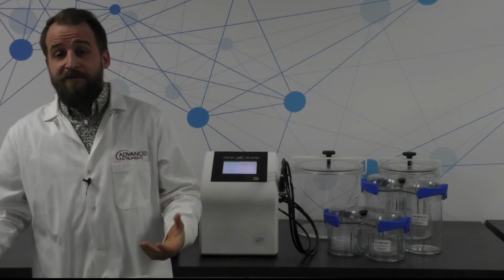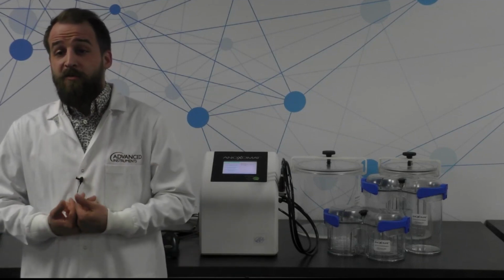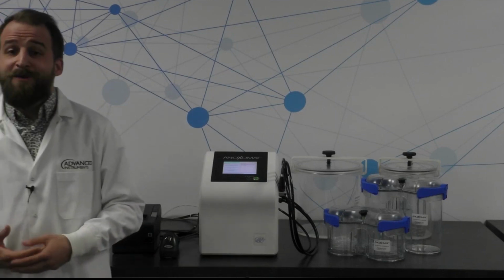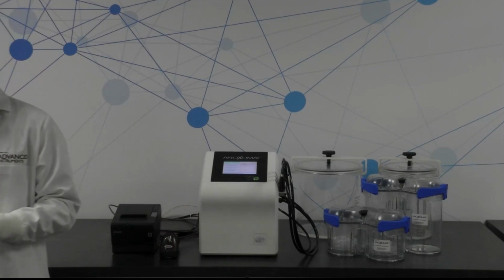So a little bit about myself. Again, I'm a medical laboratory scientist by trade. I spent most of my time in the microbiology lab. And when I was in the microbiology lab, I actually used an Anoxomat jar system. So it was the previous version, the Anoxomat II, this being the Anoxomat III.